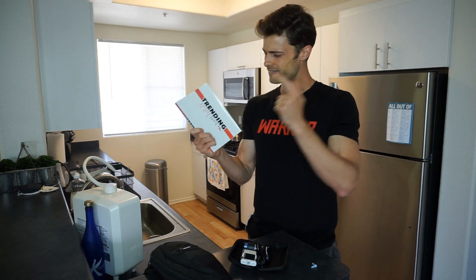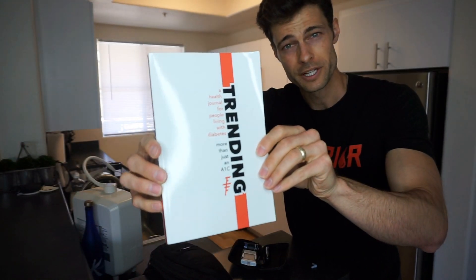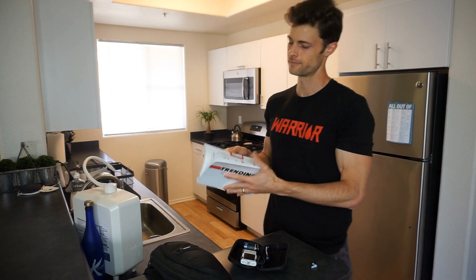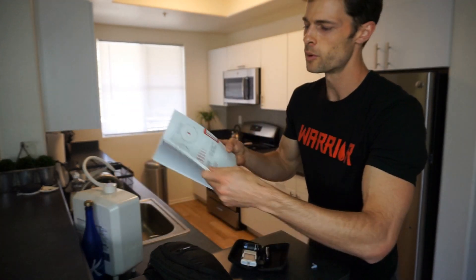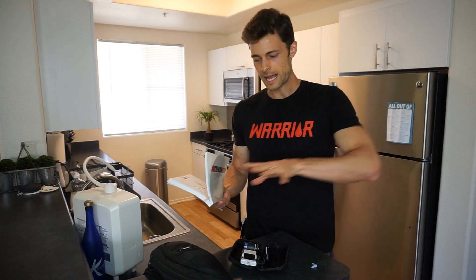I have a personal favorite — this is the Trending Health Journal. This is where I'm going to document my blood sugars. I'm biased because I wrote this, but for those who are looking for templates, this is all you've got to track. What we're looking at here is blood sugars before and after meals, before and after workouts, when you wake up, before you go to bed. The more often you test, the more data you can gather to see how blood sugars trend over the course of time.